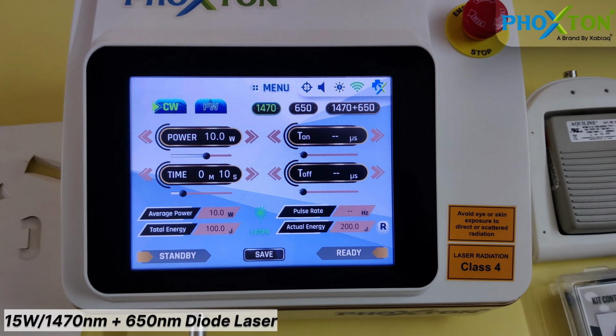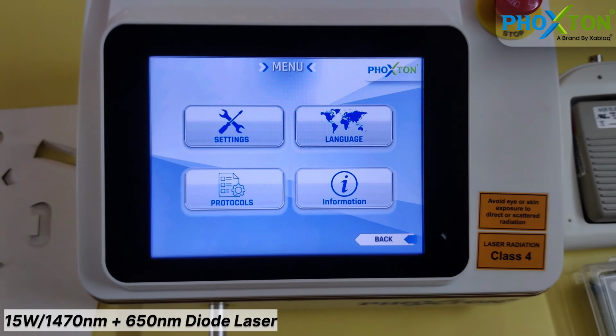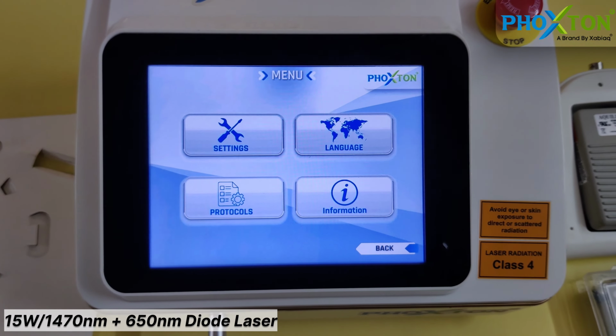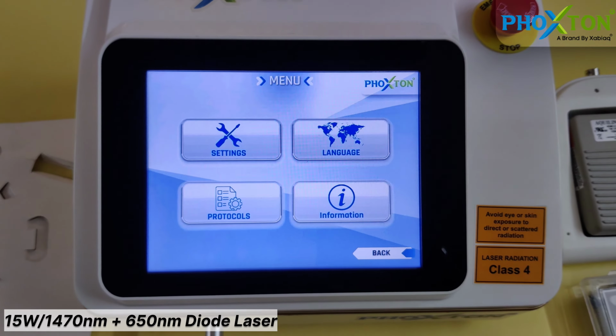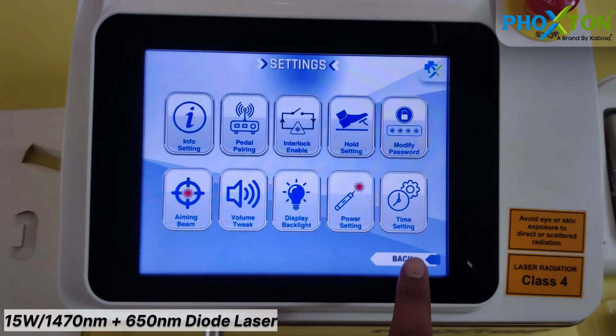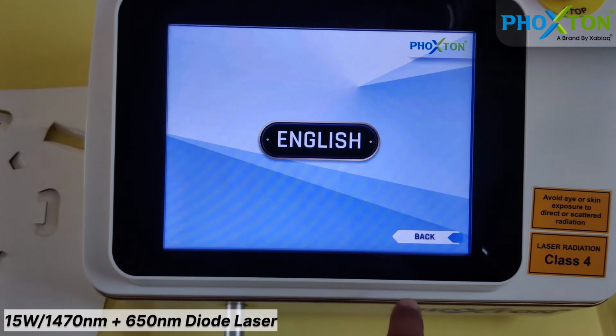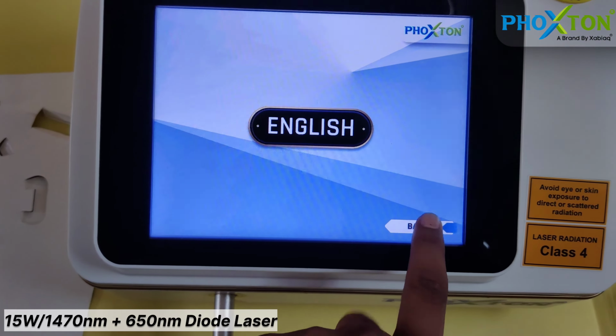Now you can see here on the main screen there is a menu option. We will be clicking on that menu option. There are 4 options there: settings, language, protocols and information. When we go to settings, there are different types of options available. Now we can go back with the back button. In language, English is currently selected. Then we will go back.